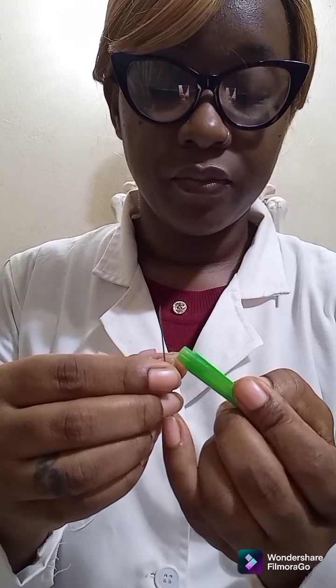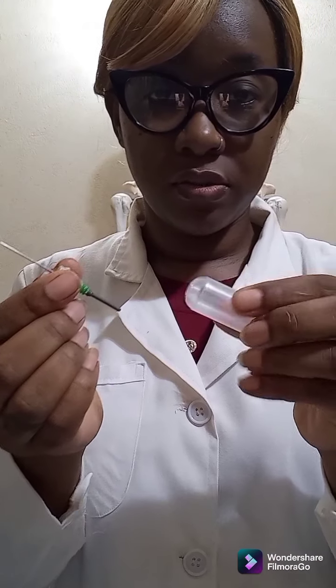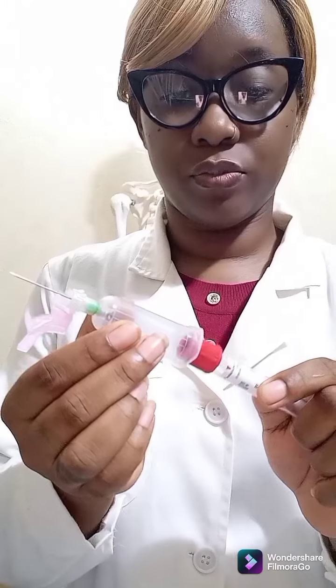Then we have our multi-sample needles, which allow us to fill multiple tubes of blood during a single venipuncture. These come with color-coded caps and also color-coded hubs, and they vary in sizes. 21 gauge is the standard size for venipuncture with normal veins. Like a hypodermic needle, there is the bevel at the top, we have the shaft, and we have a threaded hub, which is used to attach to the holder. Then we have our tube.